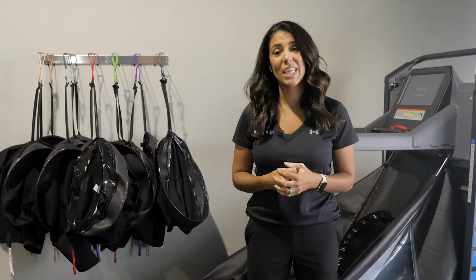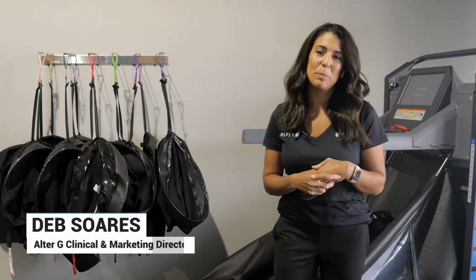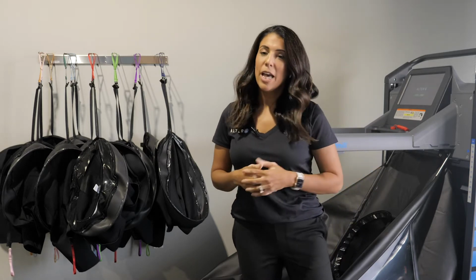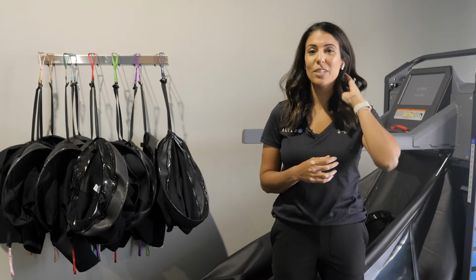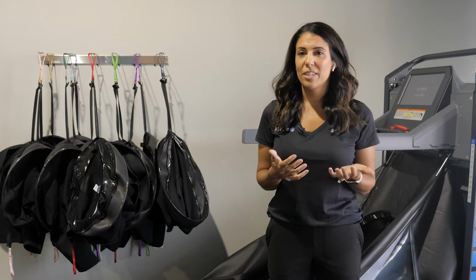The goal today is, since we can't necessarily be in front of everyone with hands-on, bring you a treadmill and let you test it out and see all its capabilities, we thought we would try to do as live a virtual in-service as we can and leave time for questions and answers that we can discuss live, answer right on this in-service. We will be sending out a recording, so if there's any parts that you missed or you want to see again, we'll definitely send this out.